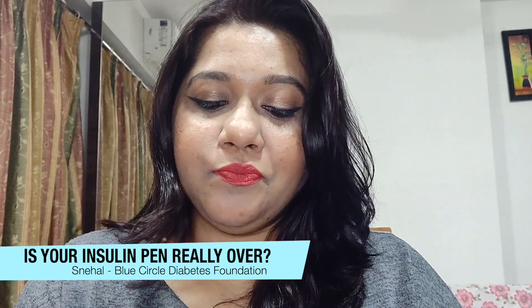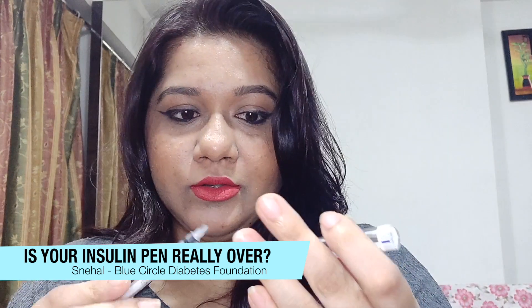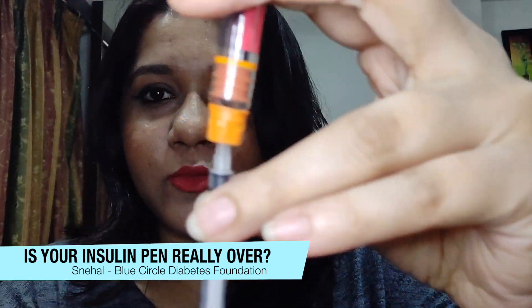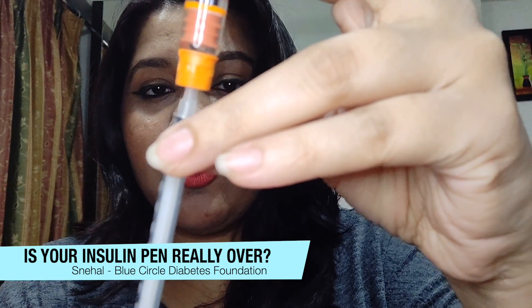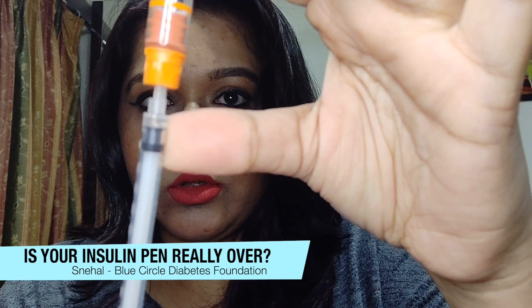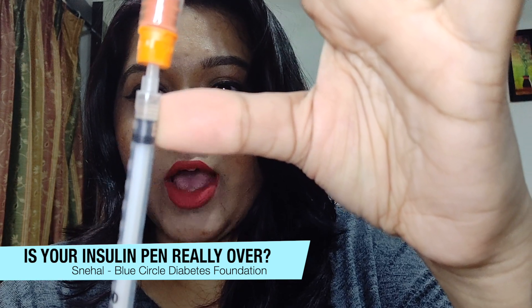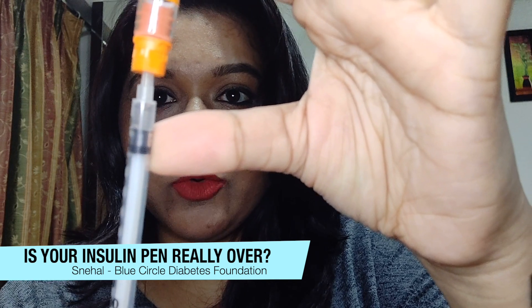So I'm going to open up my syringe and ensure that there is no air in it. I'm going to put the syringe right at the center of the cartridge and pull it out — however much insulin I can get. Be a little slow, because the cartridge is vacuum-packed, so as you pull there may be some air bubbles in it, but do not worry — we can remove them later.